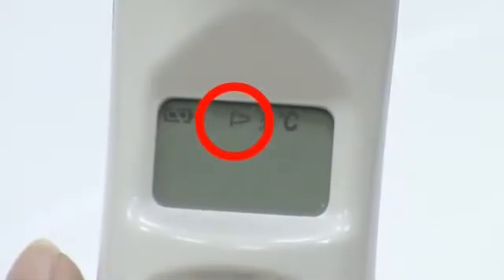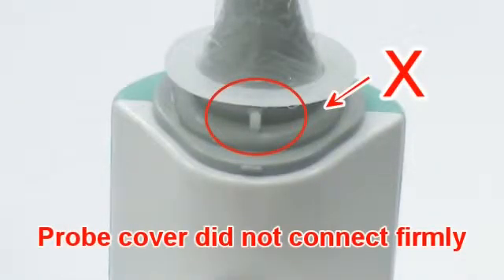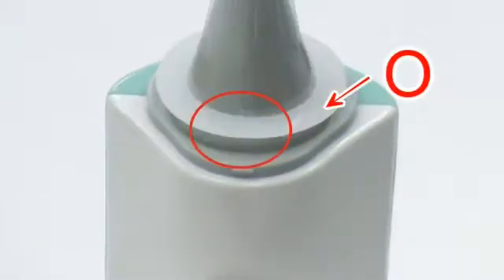If you see the probe cover icon flashing on the LCD screen, that means the probe cover did not connect firmly. Please check the probe cover installation again. Make sure the probe cover has been connected with the probe cover detector firmly.